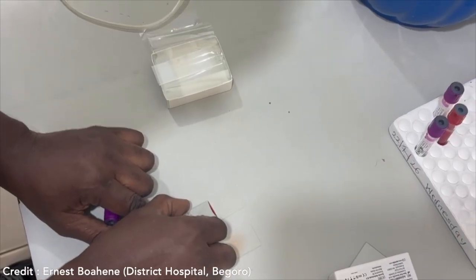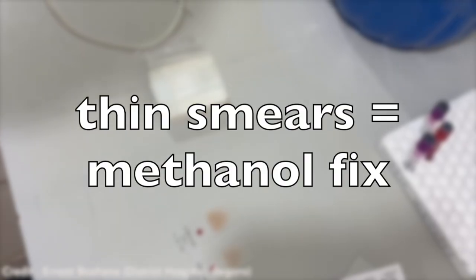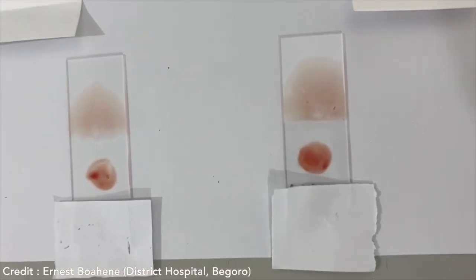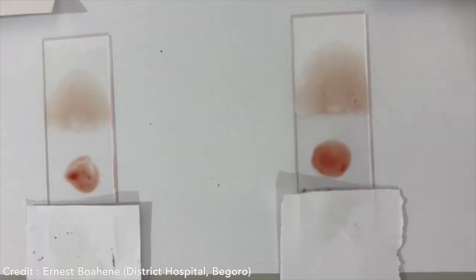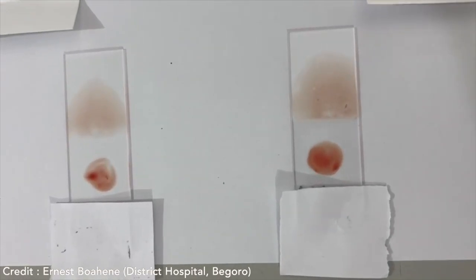And so how you fix your thin films, as we mentioned, you don't fix the thick one, is that you dip it or you spray with methanol for just a second. And this essentially glues the cells to the slide. So you don't want to go more than a second, because if you do, then the fumes or the volatility of the methanol can actually fix the thick smear.